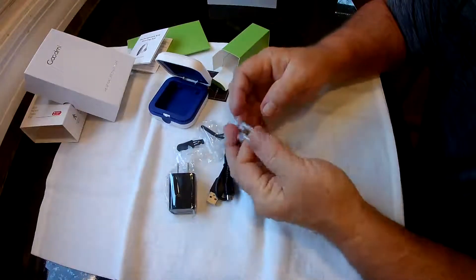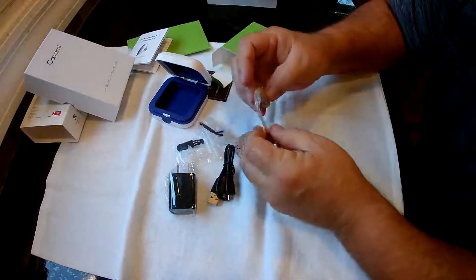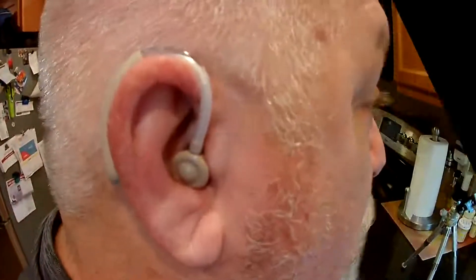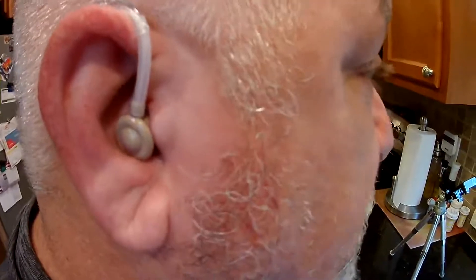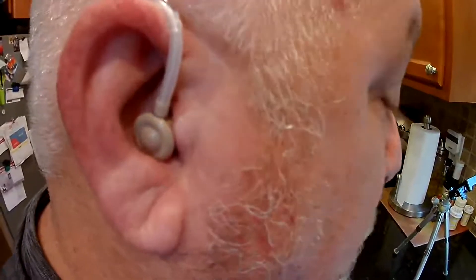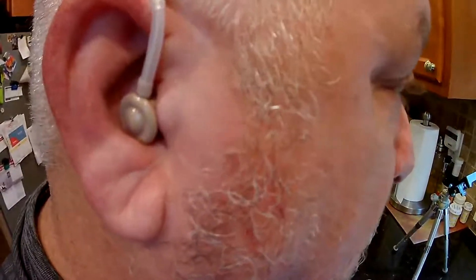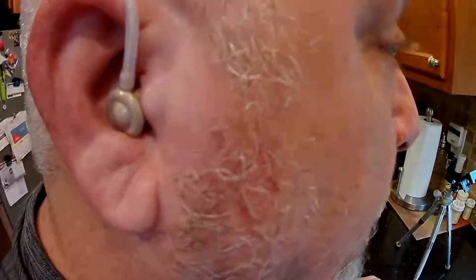I'm deciding whether to keep one for myself and give the other to my 85-year-old father-in-law. I like it. You do want to turn the volume down first — it squeals pretty loud on high and might hurt your ear. Play with the mode button to get the right level, adjust the volume, and it works pretty well after that.